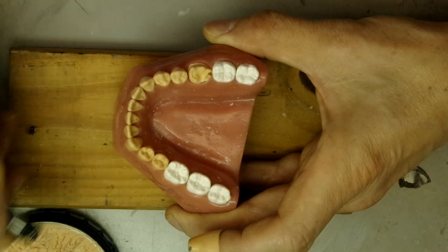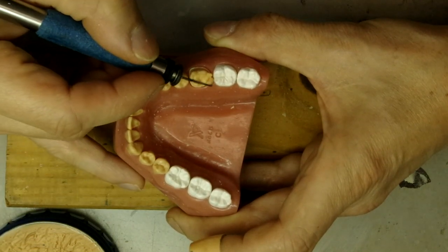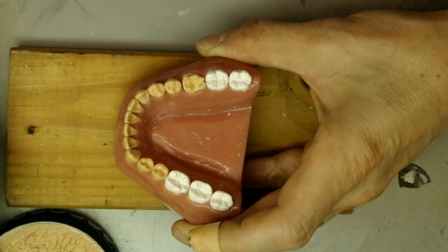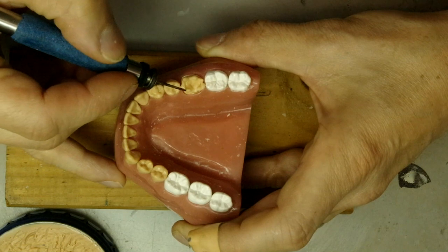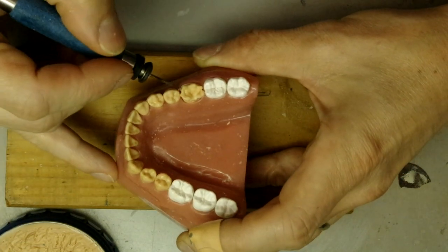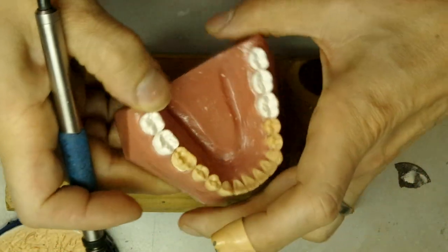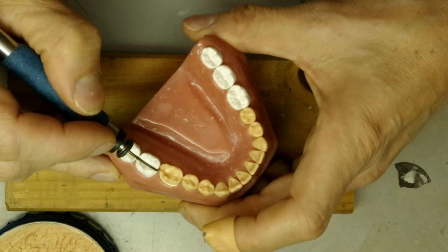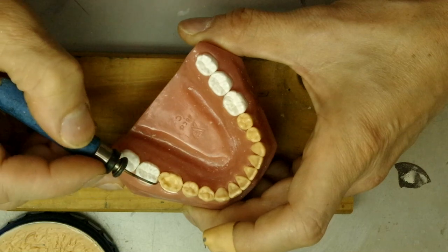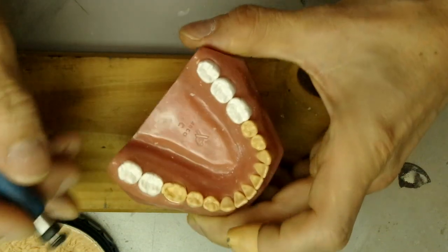Now we do the marginal ridges. Make sure you extend the marginal ridges all the way to the adjacent tooth, because if you don't, you're not going to have enough room to put the triangular ridges in. To make a decent-sized fish mouth, we have to extend the marginal ridge all the way to the adjacent tooth. Here I made it a little bit higher than this tooth, so we're going to have to lower this marginal ridge eventually.